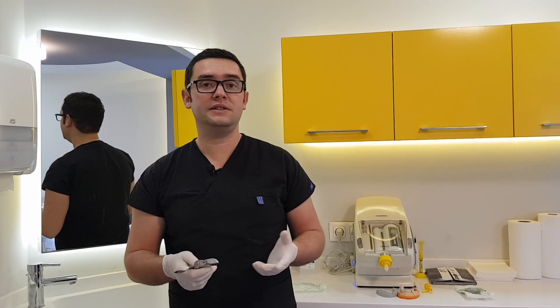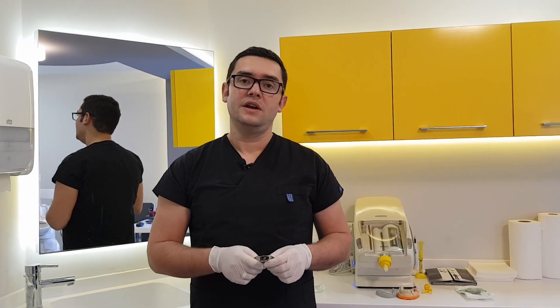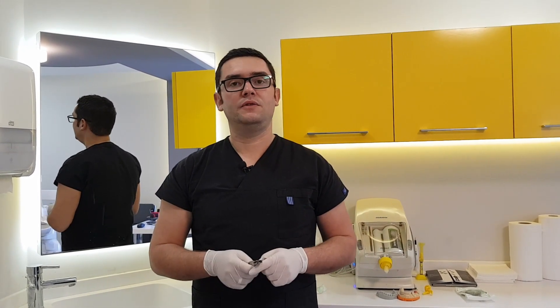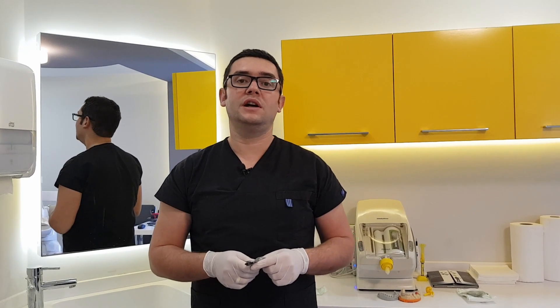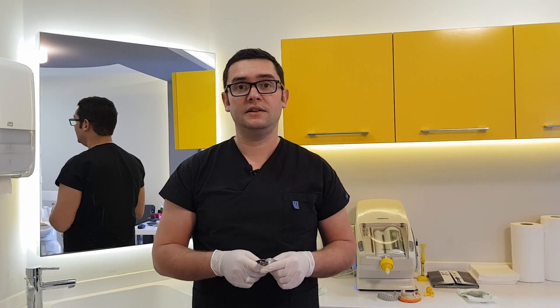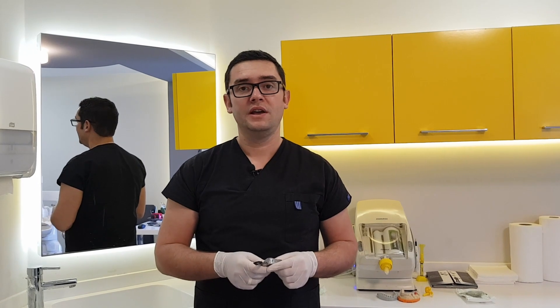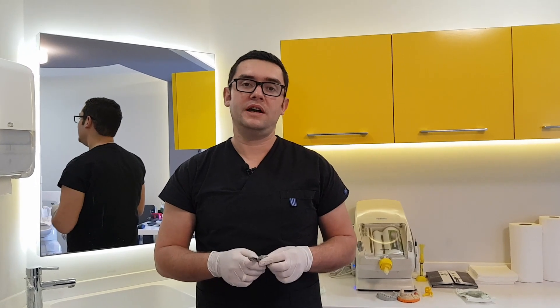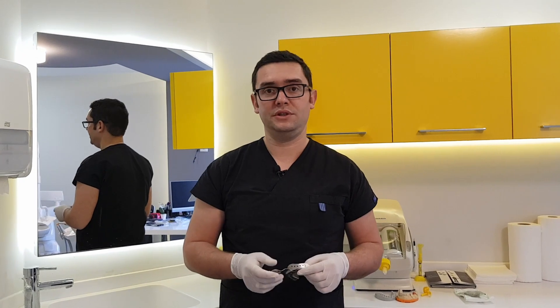For many years we have been using analog impressions. But for almost one year, we also started to use a digital intraoral scanner to take impressions of the teeth. And I want to compare and show you the advantages of the new technology.